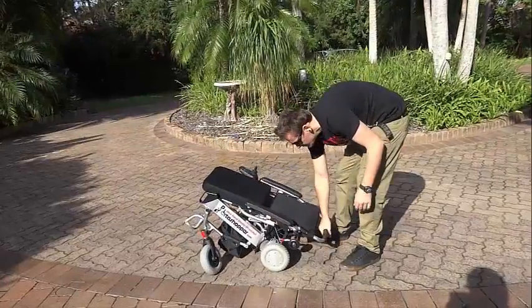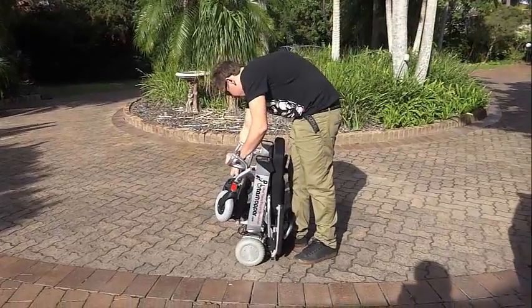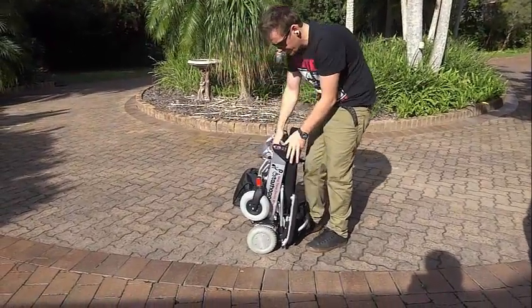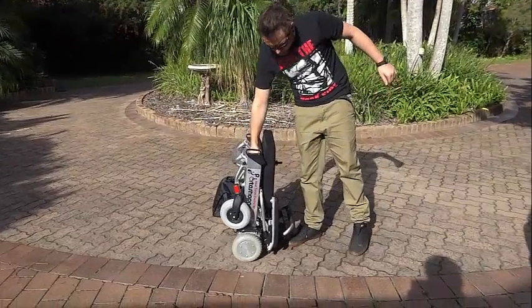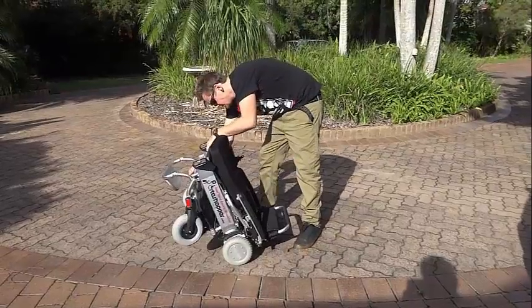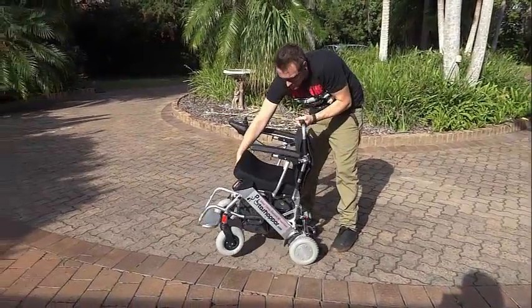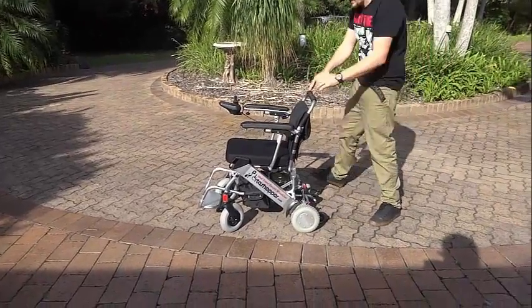Obviously, our mobility products are ideal for those who want to travel, whether by airline, cruise ship or public transport as well. Not only that, but we have listened to the needs of our clients over the last 4 years and have invented and developed some much needed options that add immense practical value to this new genre of lightweight portable electric wheelchair.